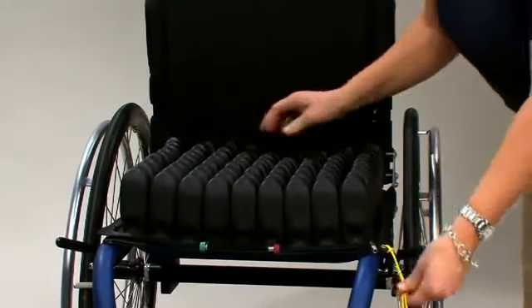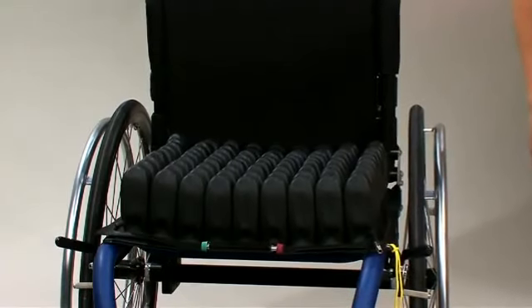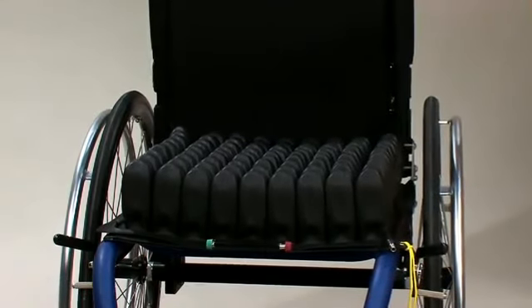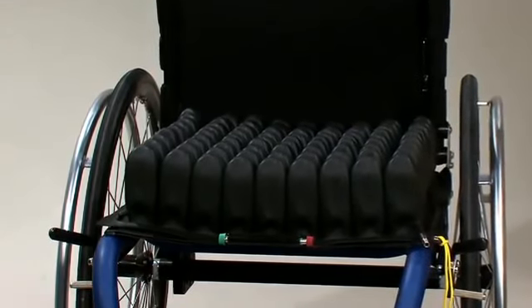First, start by placing the Select cushion on the wheelchair, making sure it is centered with air cells up and the isoflow memory control facing forward. Consult your prescriber about alternate positions of the isoflow.